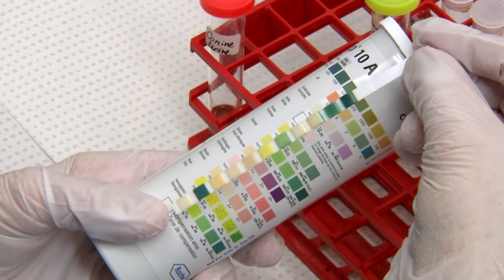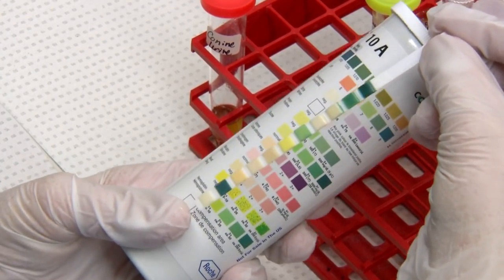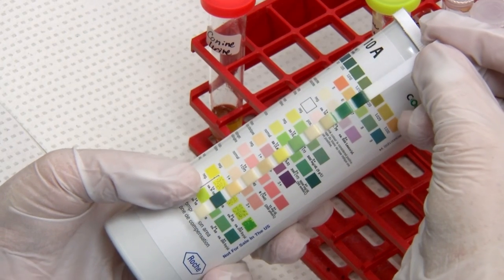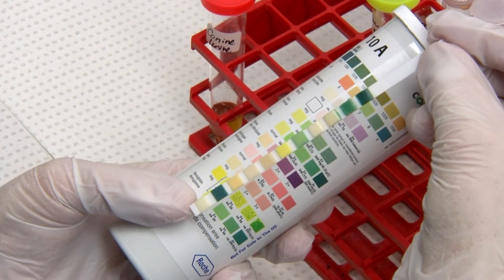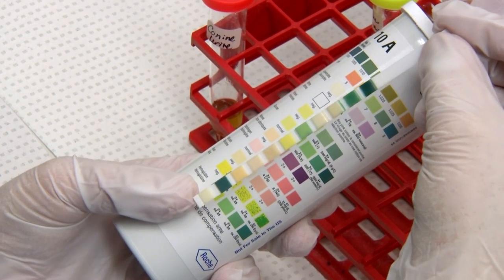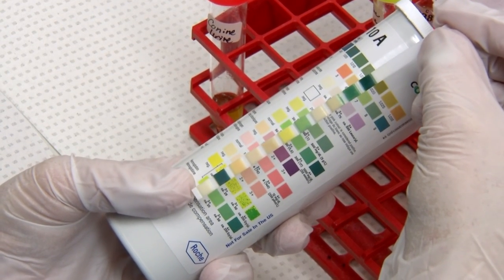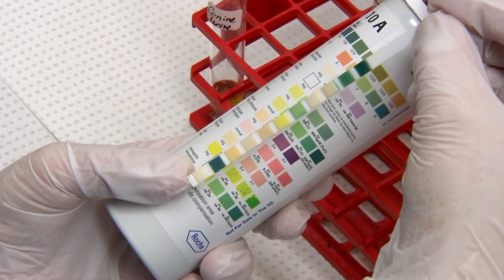Bilirubin is reported as negative up to three plus. For blood, you'll have one square on your strip and two squares on your strip container — the speckled one represents intact red cells and the solid one represents hemoglobin. We don't differentiate between them; we just report it up to three plus, and greater than three plus if blood is actually visible in your urine. Those two squares on your container correspond to one square on your strip.